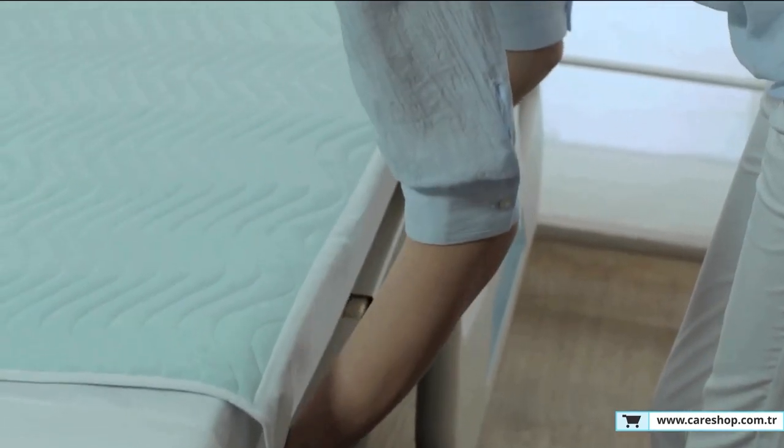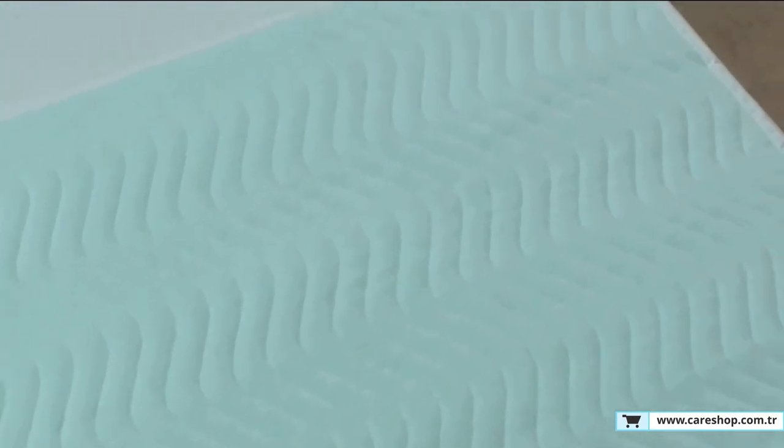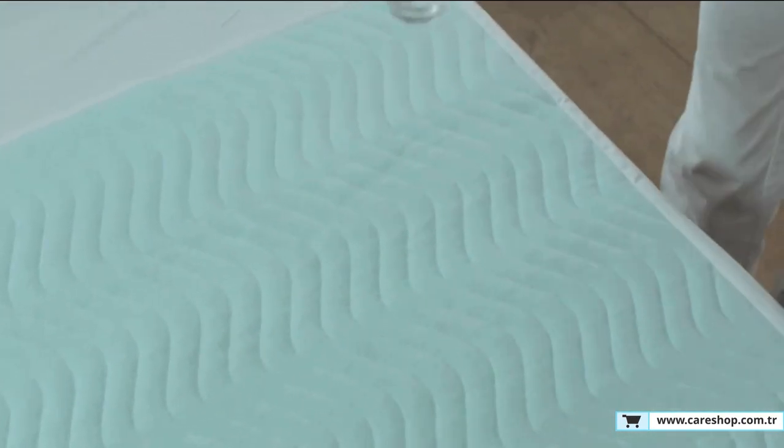The round corners of Abso eliminate the risk of unsightly abrasions, while the slimline profile lays flat, minimizing bunching and the risk of potential pressure points.